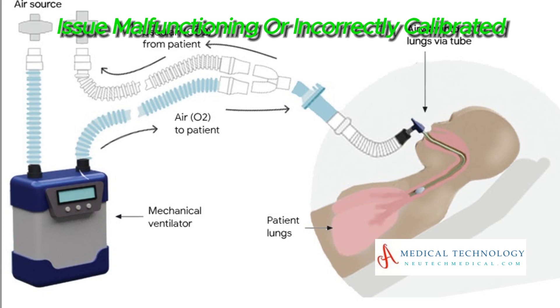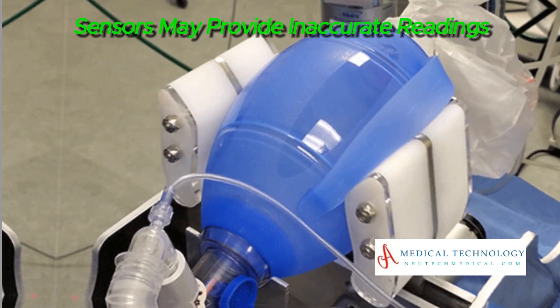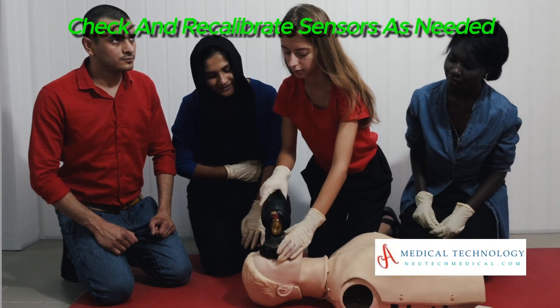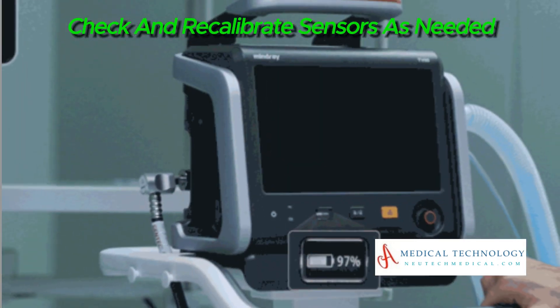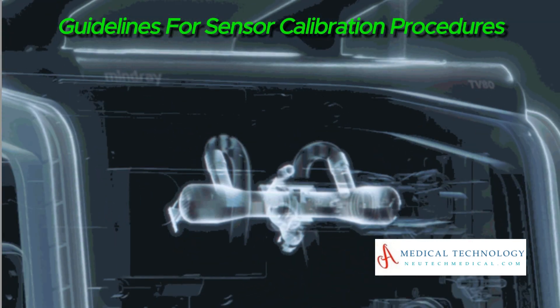Issue: Malfunctioning or incorrectly calibrated sensors may provide inaccurate readings. Troubleshooting: Check and recalibrate sensors as needed. Follow manufacturer guidelines for sensor calibration procedures.